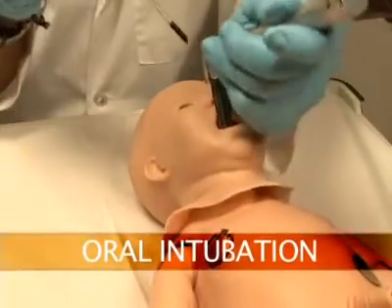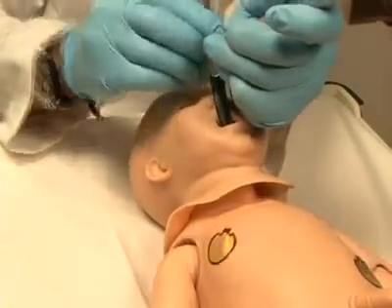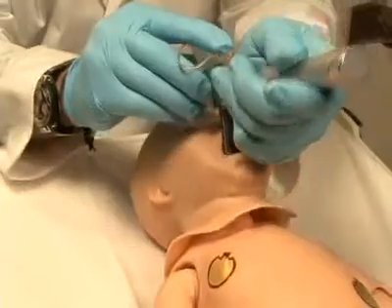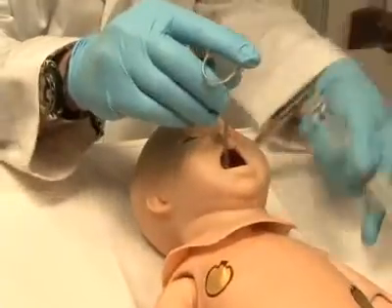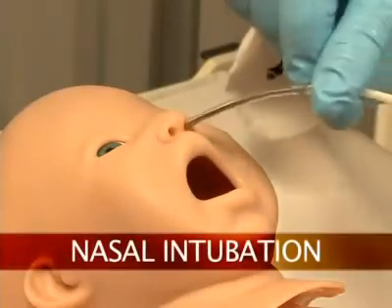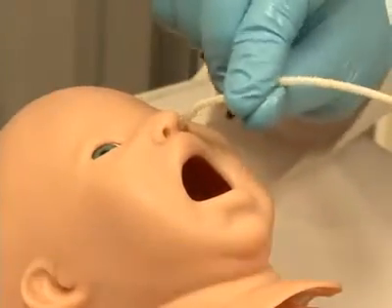Newborn HAL can be intubated orally using an endotracheal tube if ventilations are required, and nasally if a nasogastric tube has been inserted.